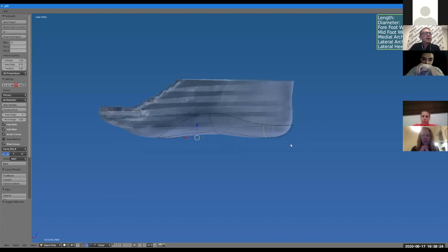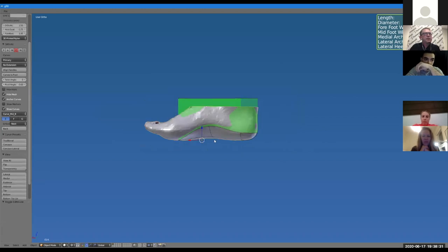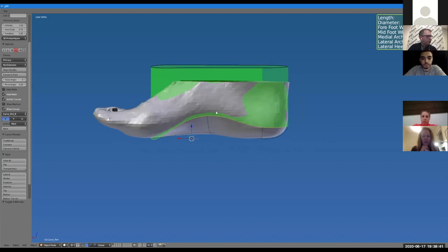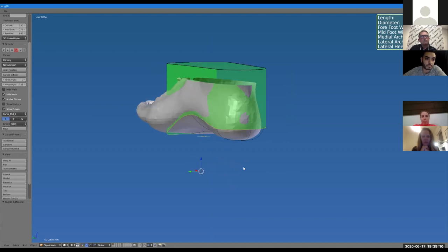Let's go back to our design. When we've balanced the rear foot to zero, we give you 90% of the height of the arch regardless of whether it's a mid, modified root, or as is — we bring the height to its maximum, which in this case is 29 millimetres, then drop it by about 3mm to around 26. So that's our standard arch fill technique at rear foot zero.